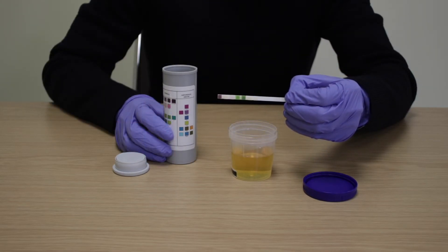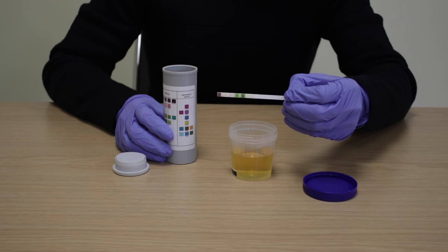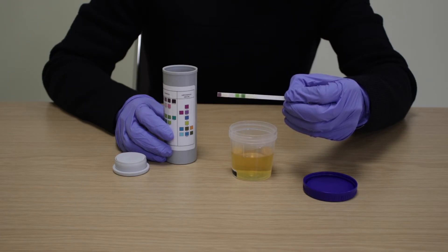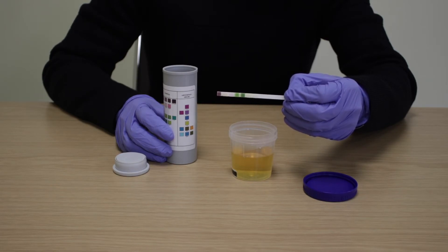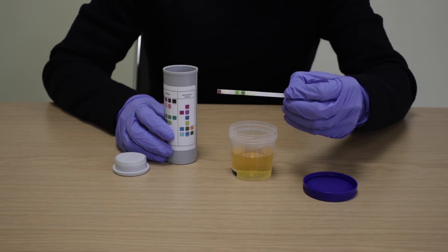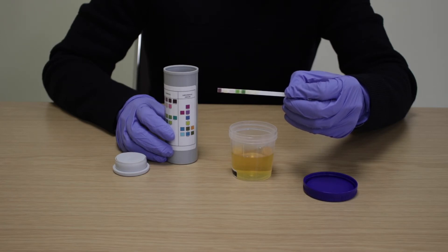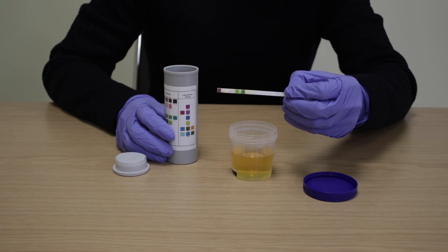Obtain results by direct color chart comparison for all seven markers. An abnormal result for any of the markers suggests that the sample has been manipulated, altered or contaminated.